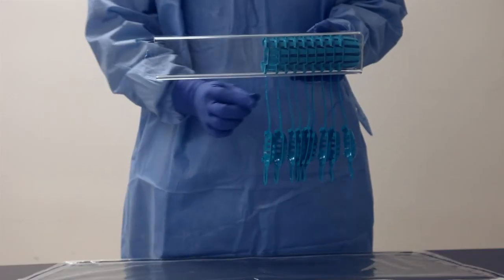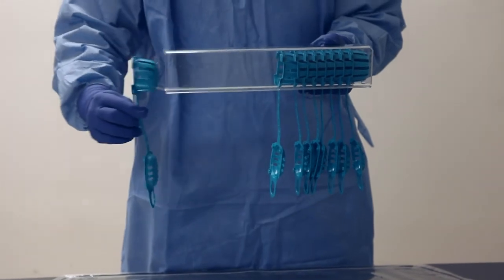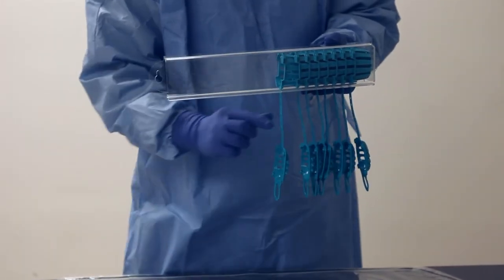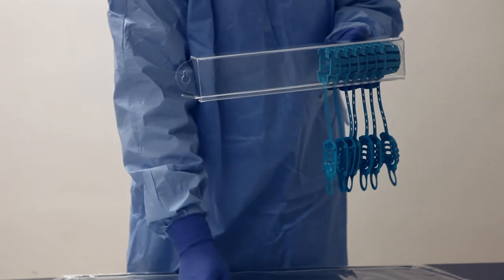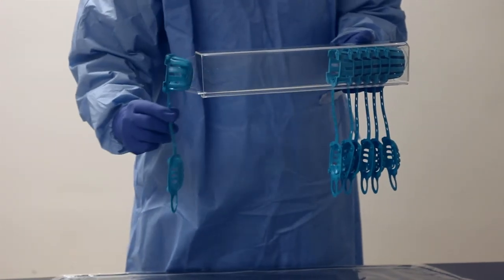Finally, there is a dedicated wall dispenser available for ValveSafe, allowing easy and tidy storage of the product, which helps maintain a smooth workflow throughout the endoscopy unit.